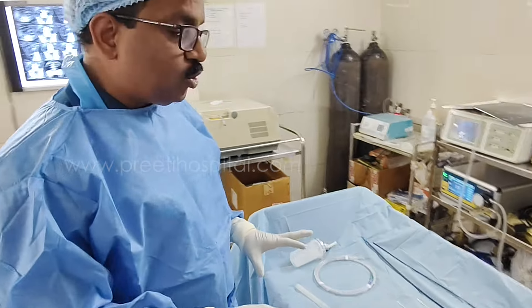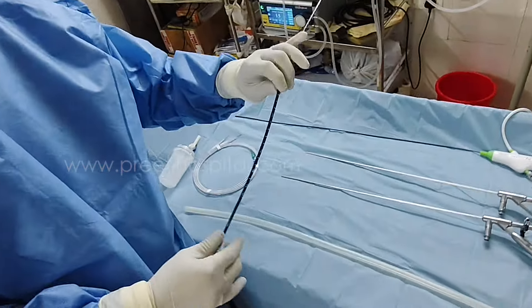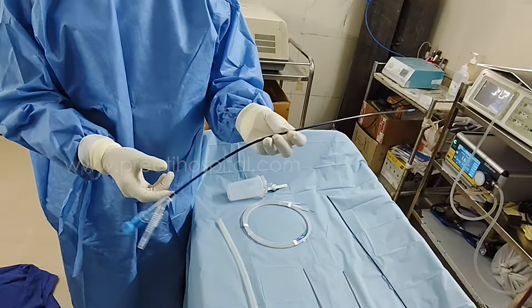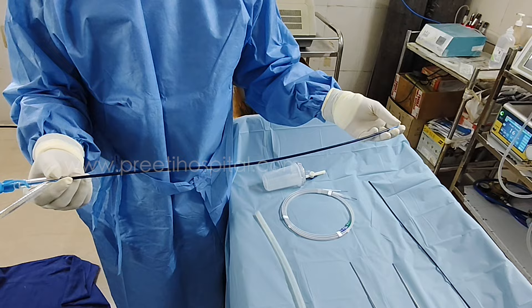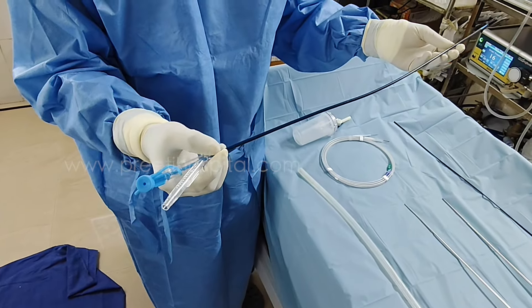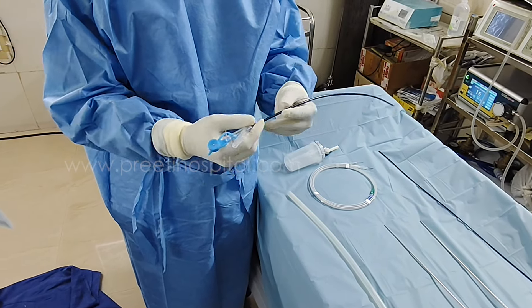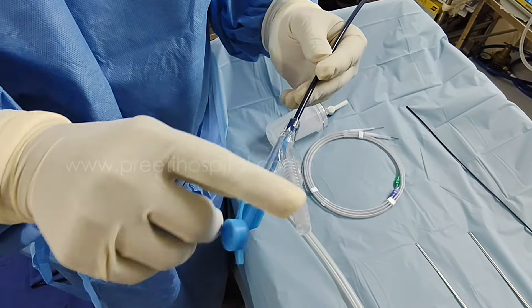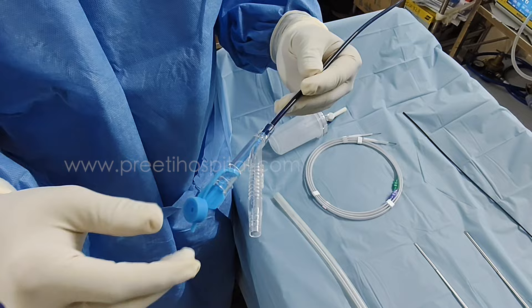For equipment, minimum is needed: 2 ureteroscopes, and 1 access sheath. This is the access sheath everybody wants to know about. The difference between the normal access sheath and the fan suction sheath is that it is 50 centimeters. From the tip of the male urethral meatus up to the inferior calyx, it may be around 50-55 centimeters. Tall persons it will be more, short persons less. Another difference is that normally in RIRS the sheath is straight — the fan sheath will cause suction through the access sheath.